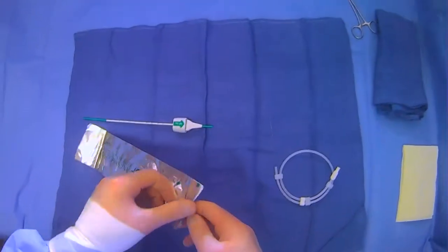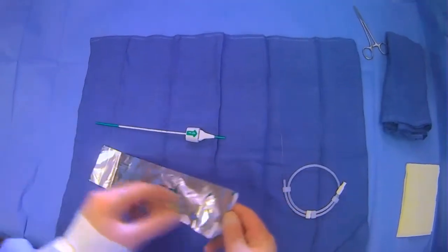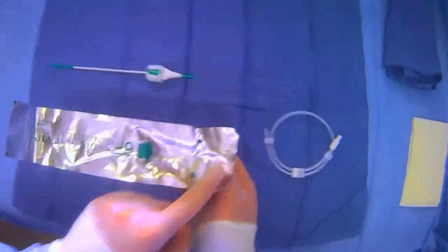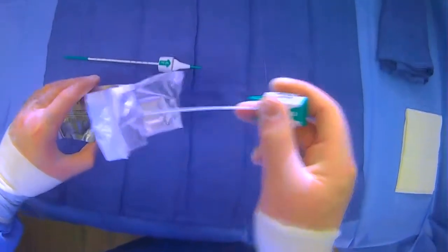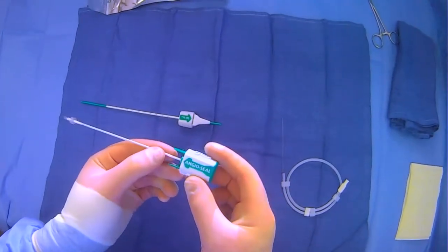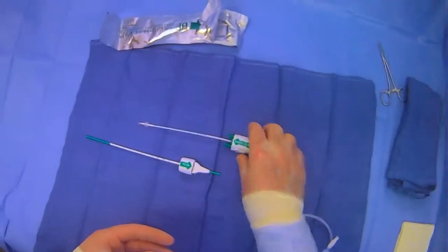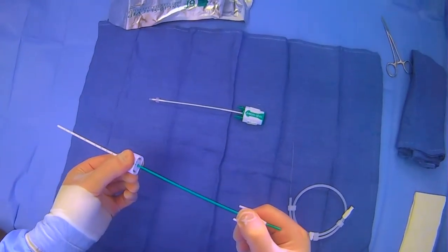What you have here is the actual AngioSeal device. We keep this in the foil until we absolutely need it to avoid any contamination. You just open it from the top — the packaging shows you where to open — and you'll have your AngioSeal device. This is what you'll use to close your arterial access point. For this unboxing and explanation, we're going to deploy it here, and a more representative example will be shown in a separate video.